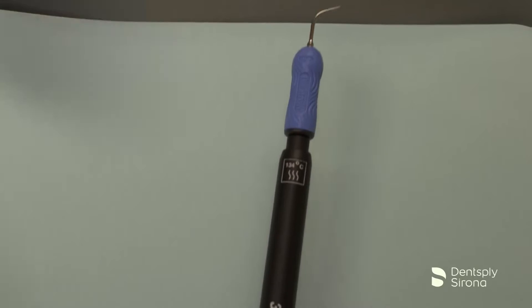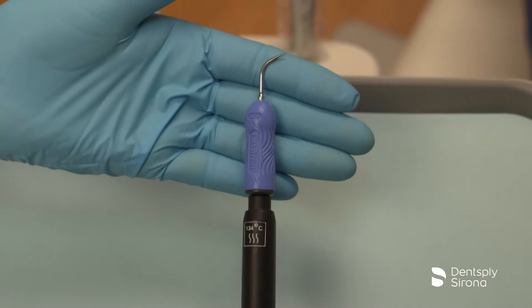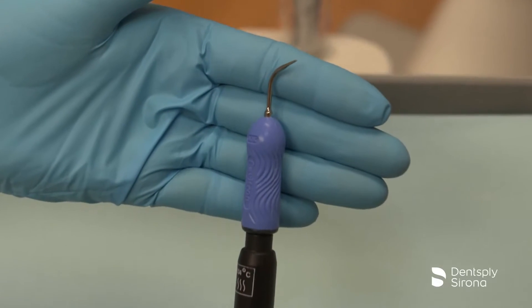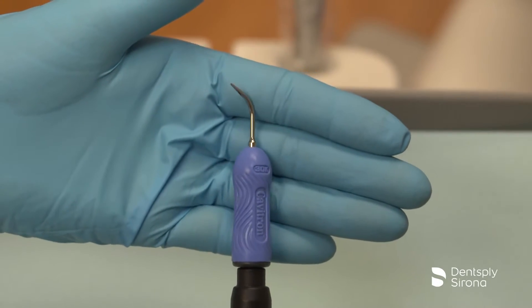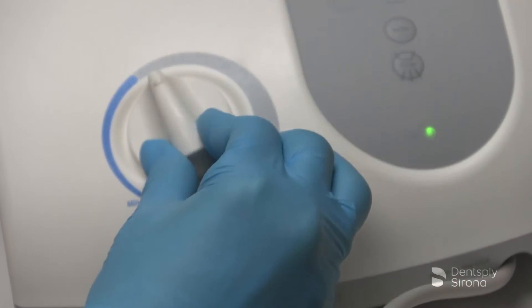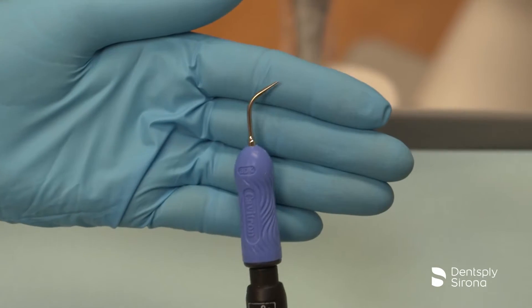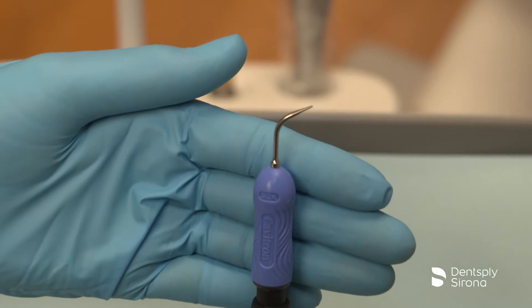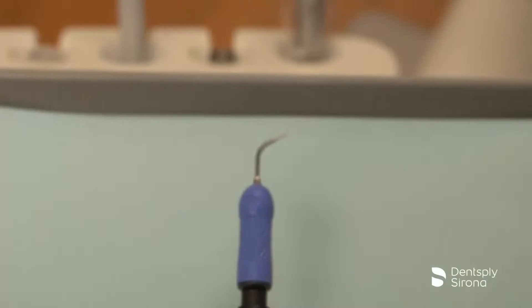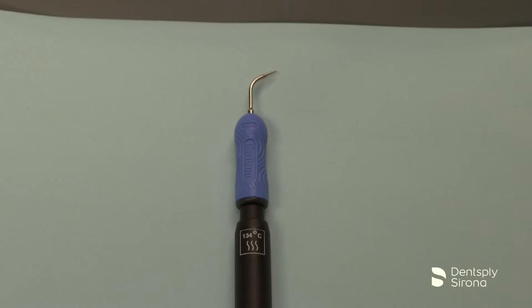This is the Cavitron FSI 10. It is designed for removal of moderate to heavy deposits and can be utilized at all power levels. The Cavitron FSI 10 has a straight shank and can be used on all accessible tooth surfaces.